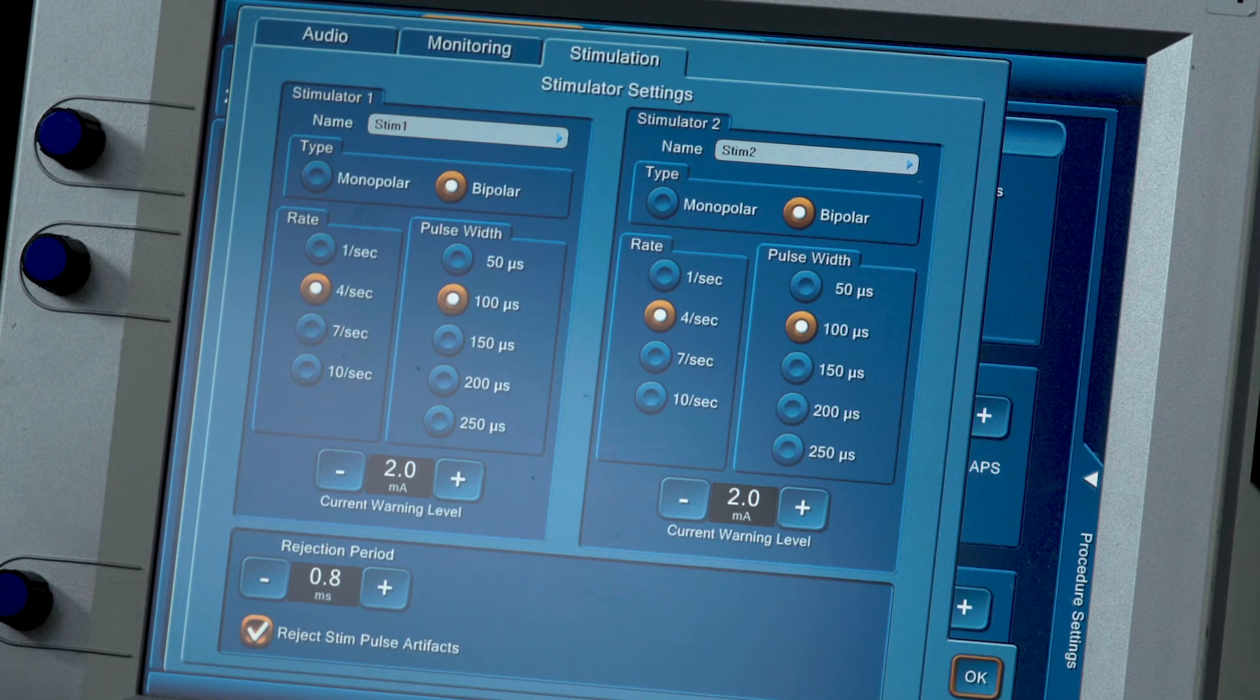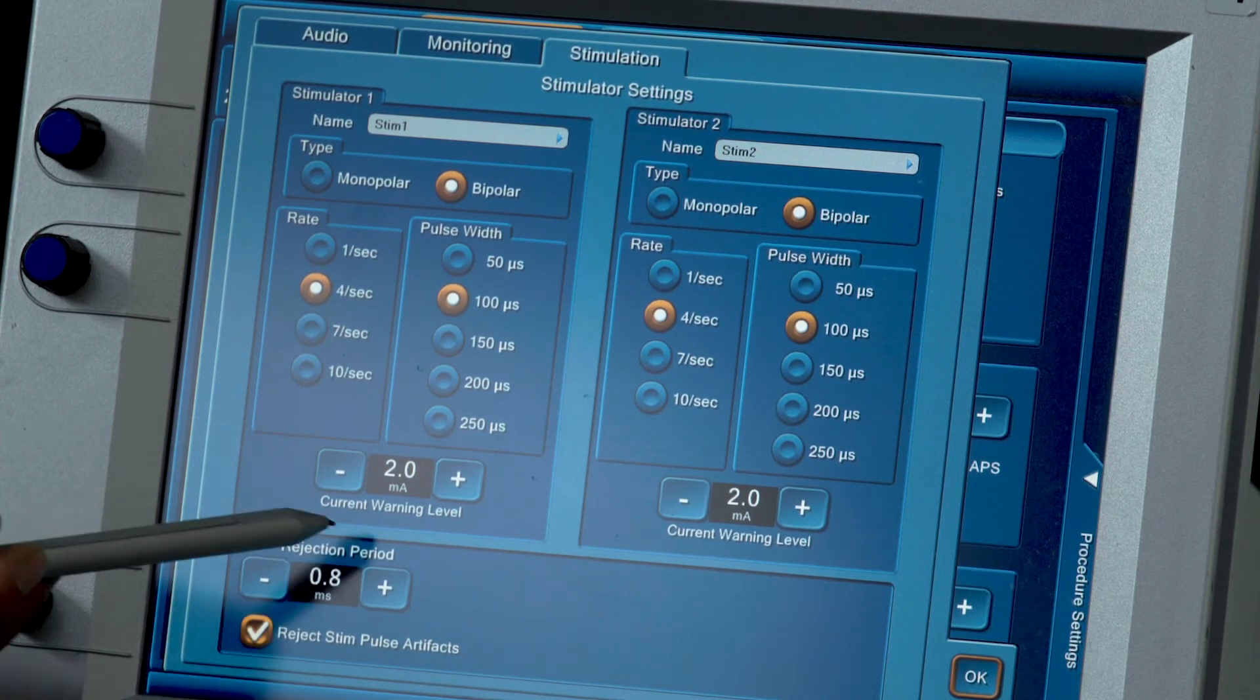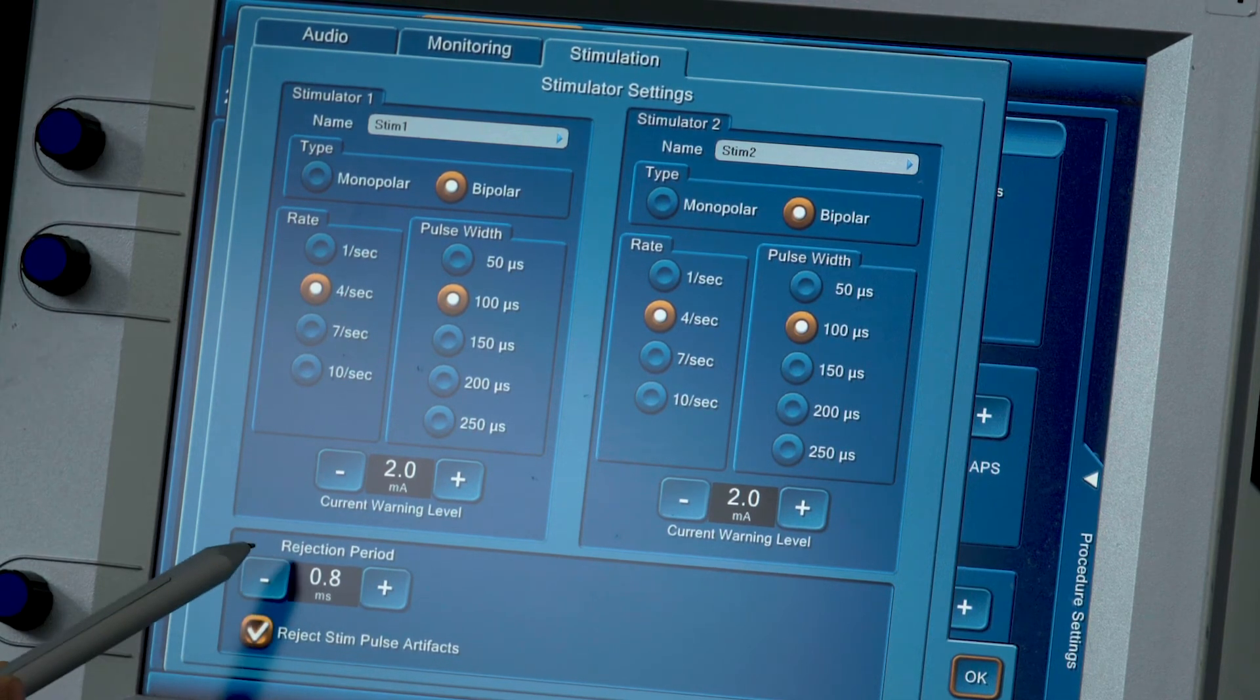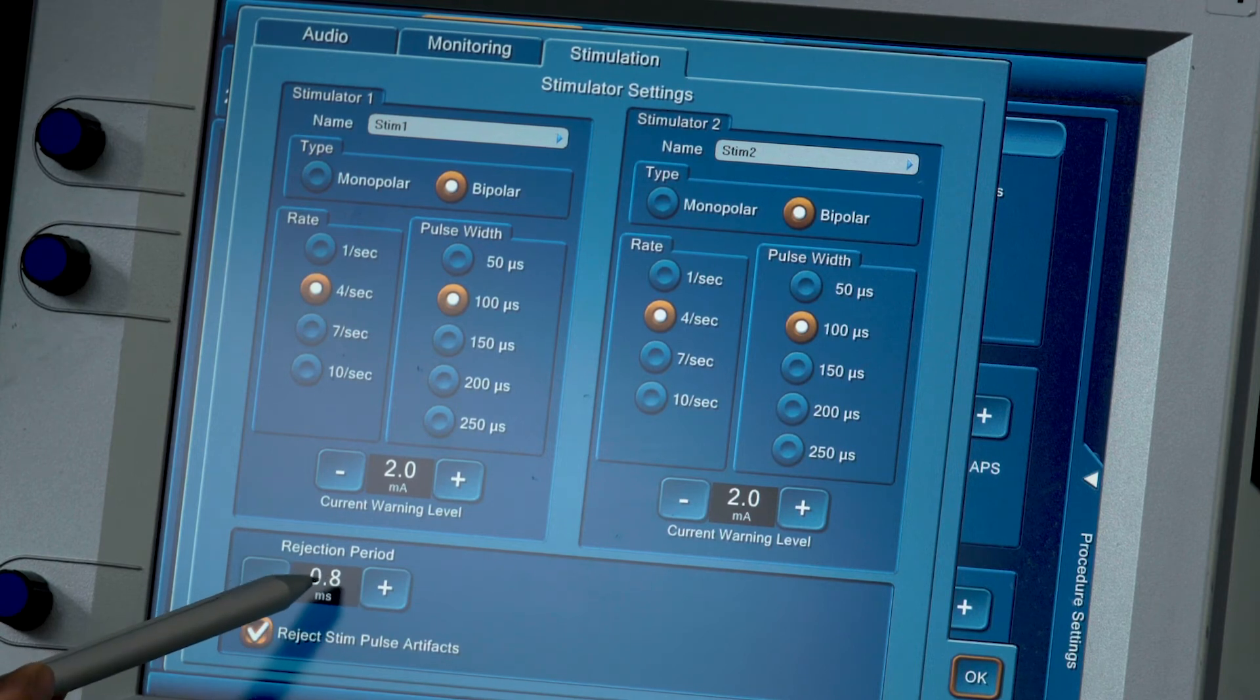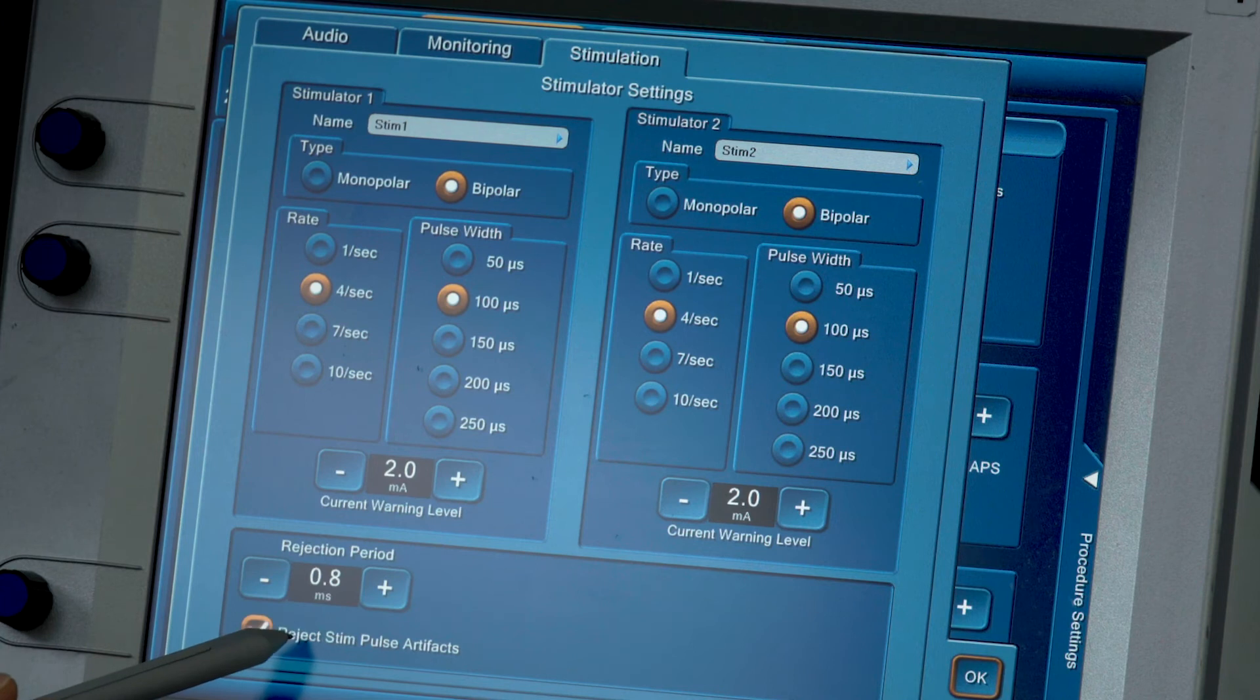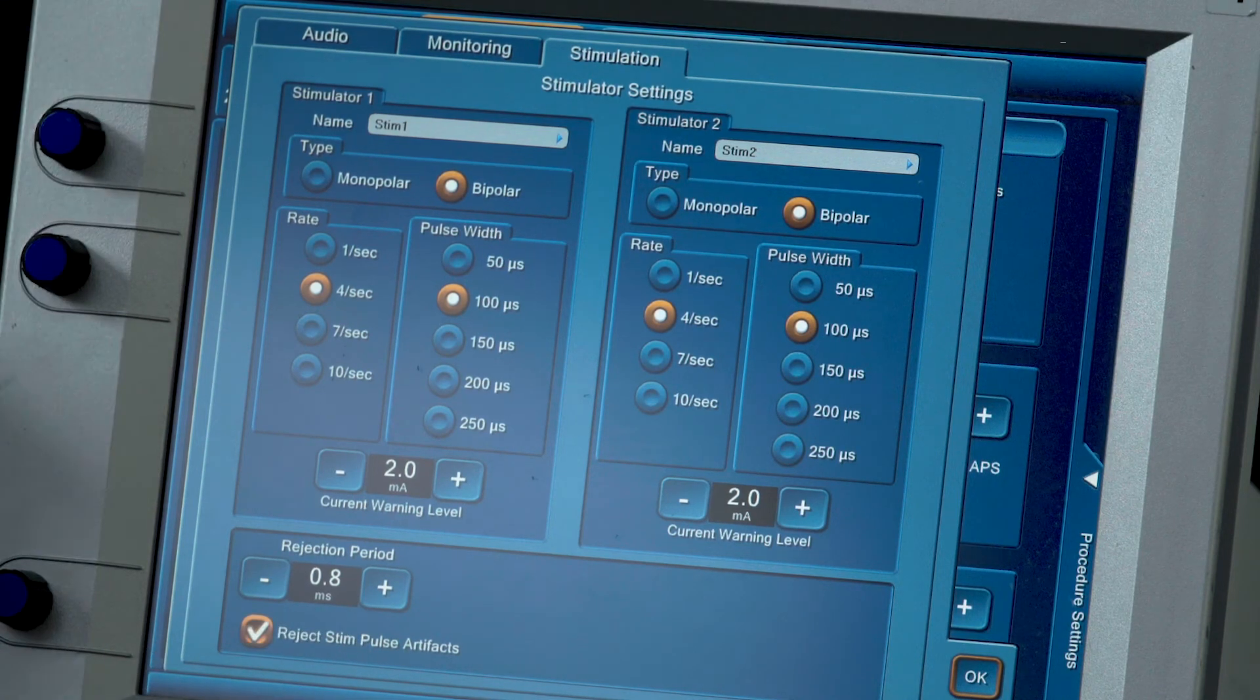The last thing I want to point out is this part right here, the rejection period. We have set it to 0.8 milliseconds and rejects stim pulse artifacts. That is to help silence that electrocautery and all that electrical interference.